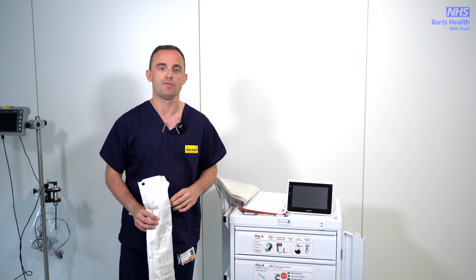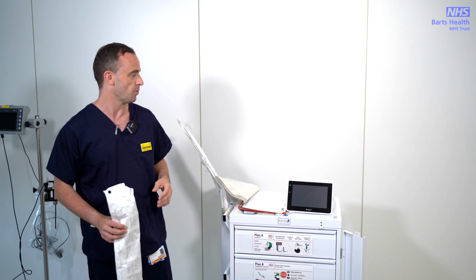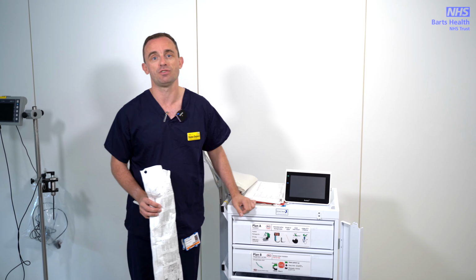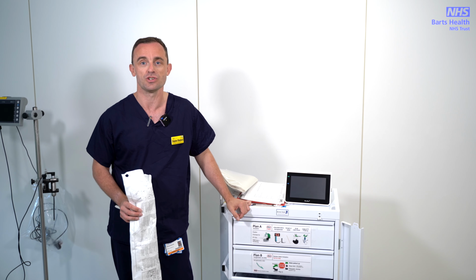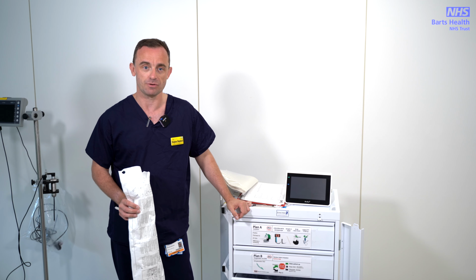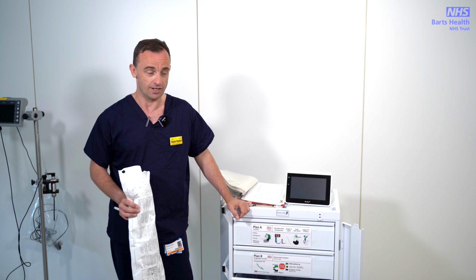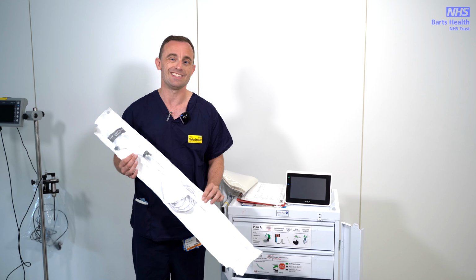We have a variety of bronchoscopes available for use, and our preferred system is the Ambu aScope system. This requires a screen, and you'll find these dotted around quite a large number of theatre complexes, but particularly the thoracic theatres, which are 2, 3 and 10. You'll also find them in Theatre 7, which is our emergency theatre, and on every one of the intensive care units. Essentially, this uses a disposable aScope, and again, we have 3 sizes on this site.